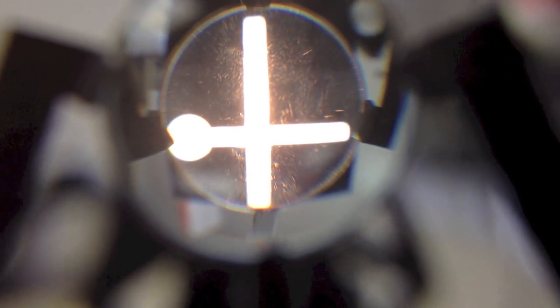So again, pull the plus 20 lens back a little bit to spread them apart, which means a lot of pluses are going to be coming out so you won't be accommodating. And then move the plus 20 lens closer to the other plus 20 lens until you can first make out the detail on the tape.